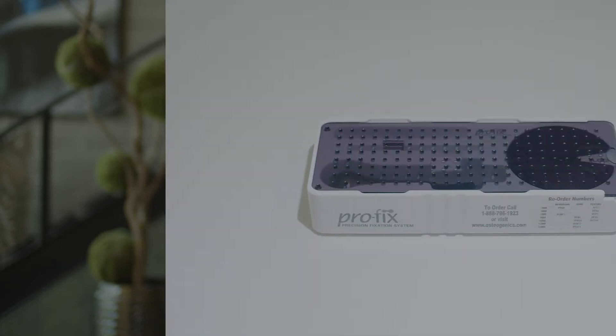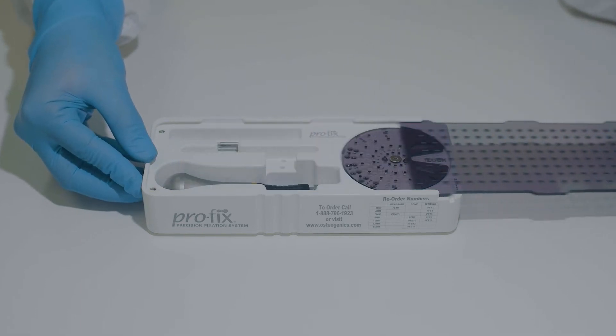Today I'm going to explain how to navigate the ProFix Membrane Fixation System. To begin, remove the protective covering from the kit.